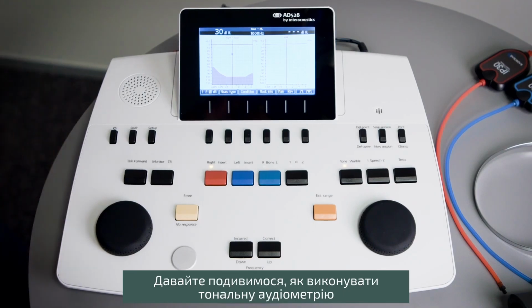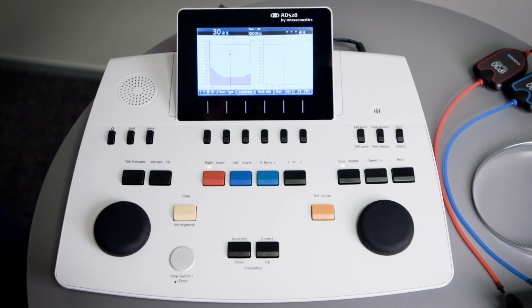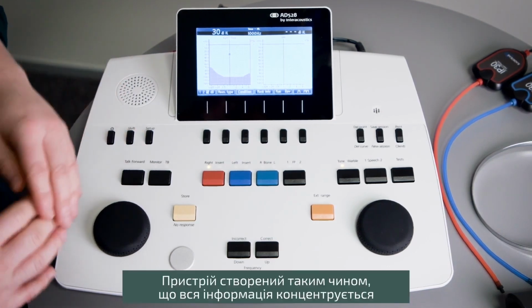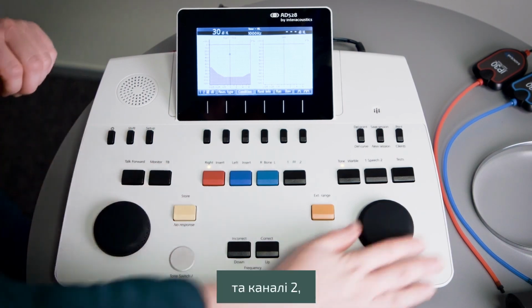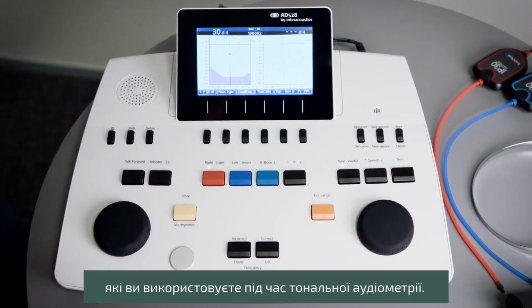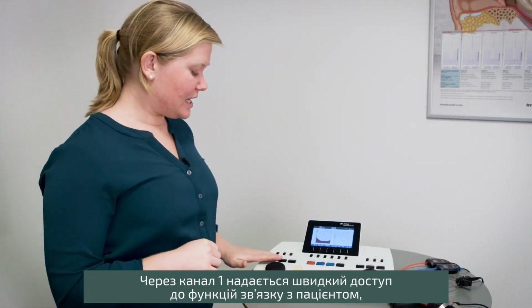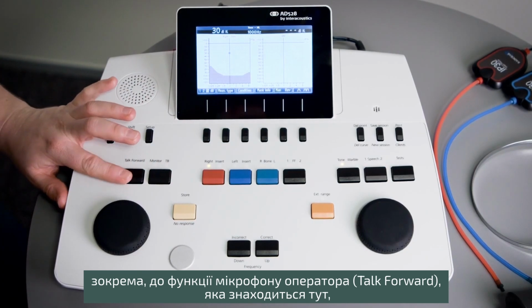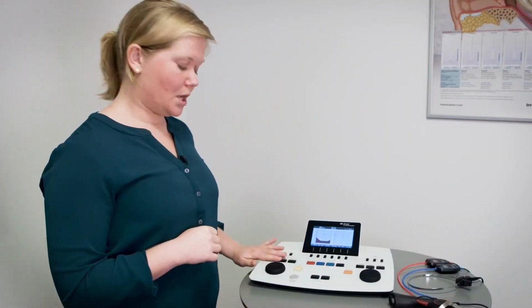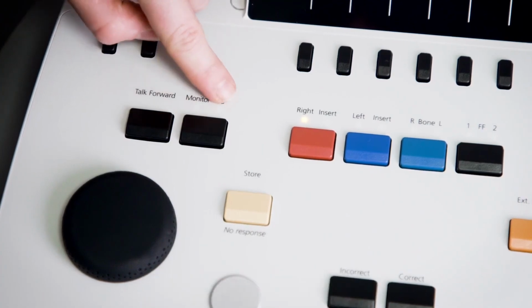So let's have a look at how you can perform tone audiometry using the AD528. The device has been built up so information is really centered around the channel 1 and channel 2 that you use during your tone audiometry. So around channel 1 here we have easy access to the patient communication, which includes the talk forward function, the monitor function and the talk back function.